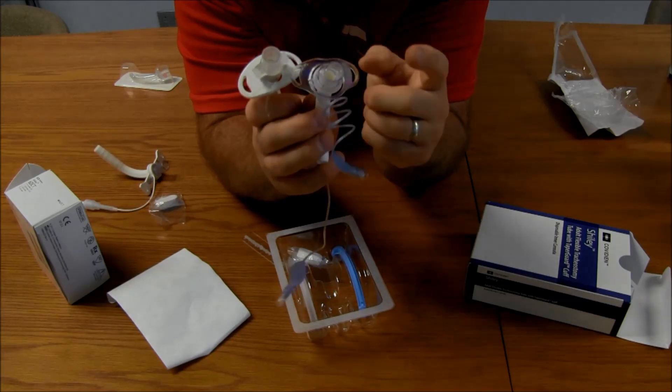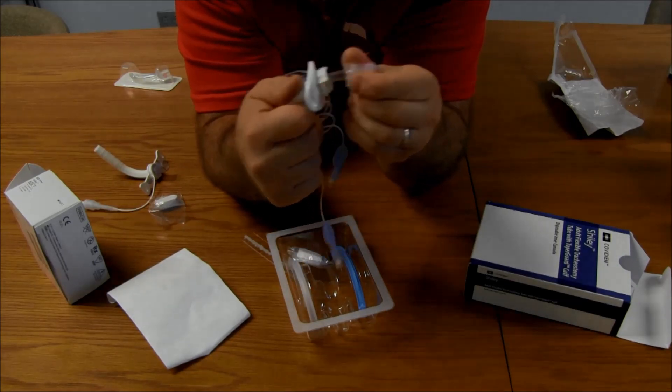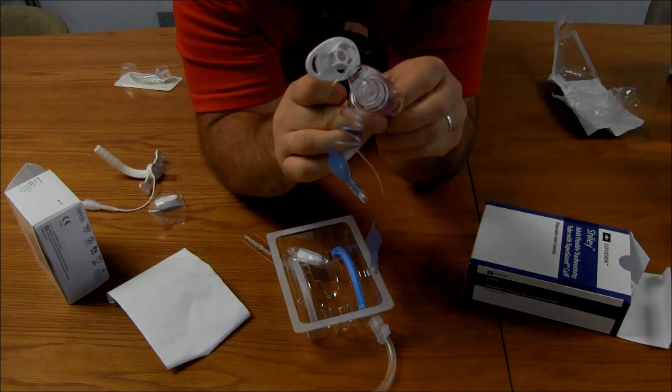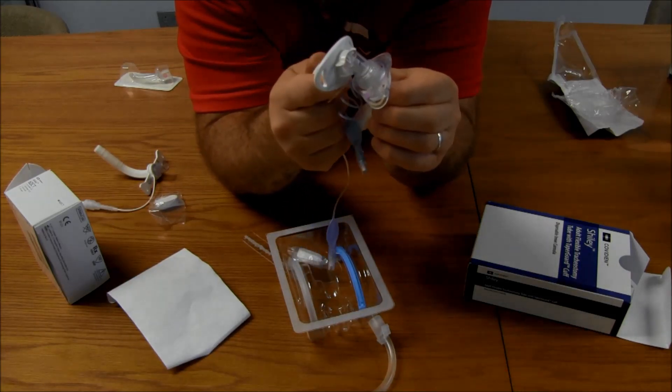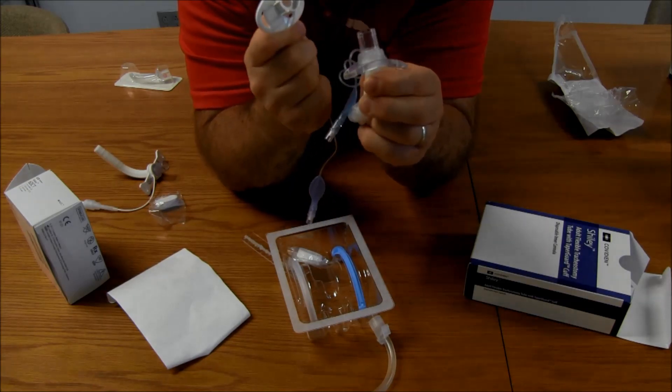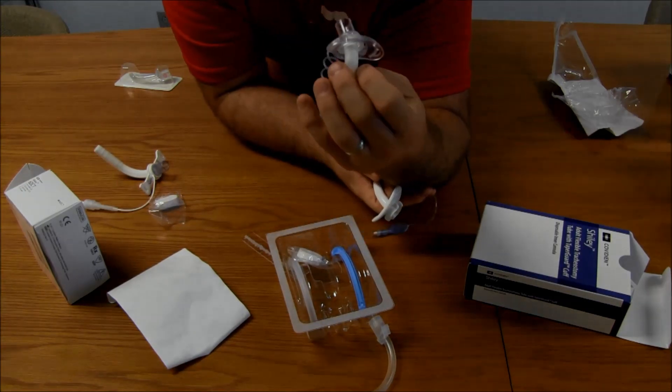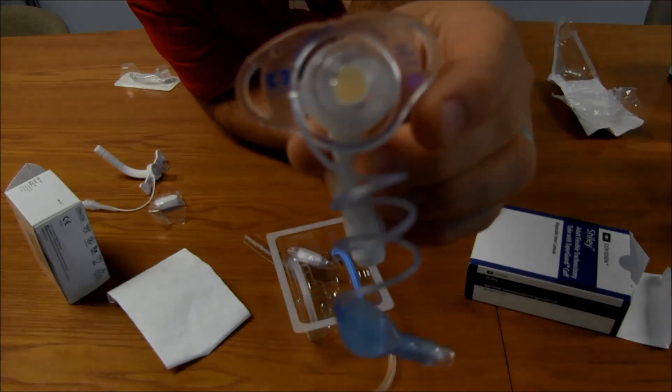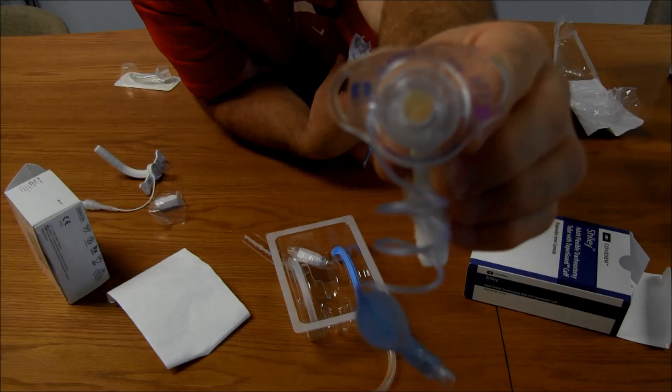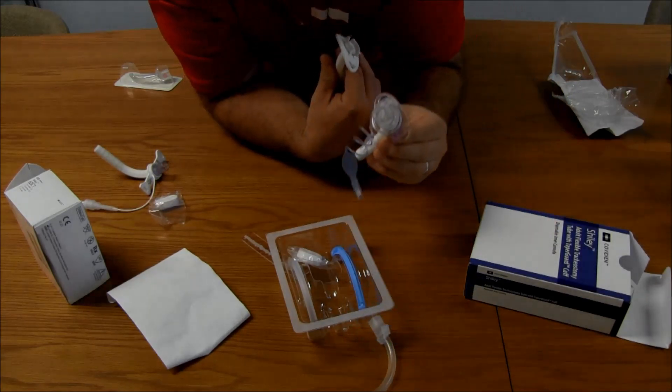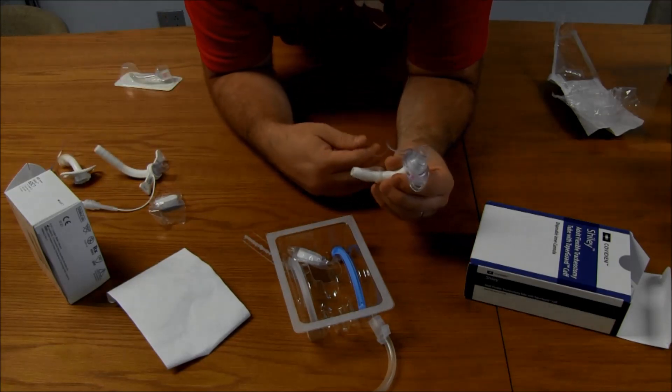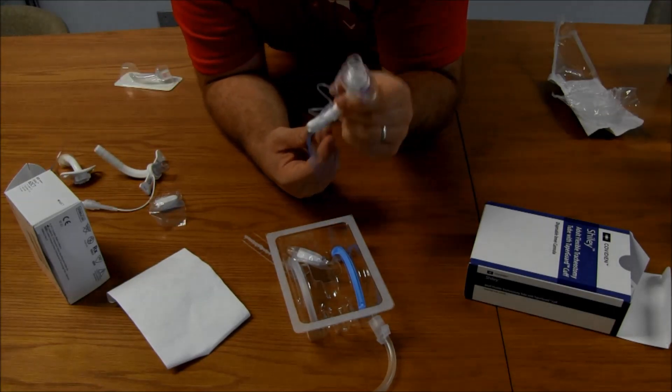Notice something else also. So, that's a fixed 15mm adapter. That doesn't come out. So, it's kind of the best of both worlds because you're going to have that attached in case you have an emergency. You'll never lose that as long as that tube's in. And then also, if you look on the front here, it's 8.0. And then you have your purple, little purple part on there. So, it shows you, connects all those different things together with a color.